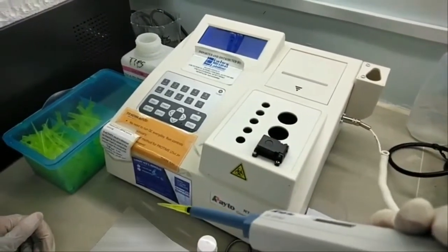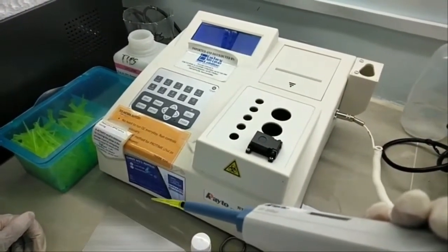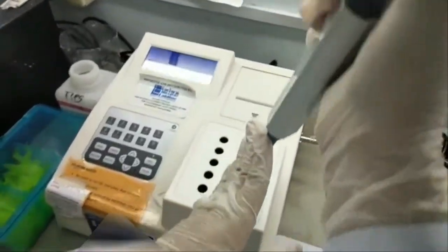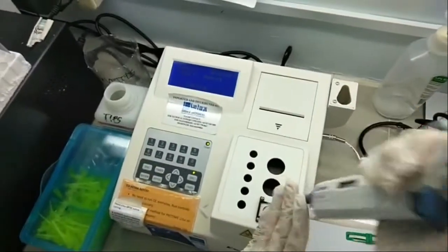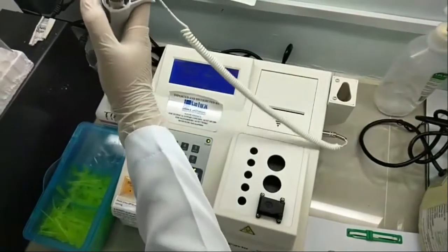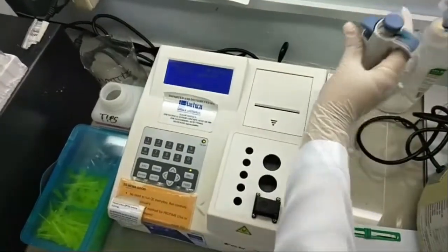Wait until the LCD displays the ADD REAGENT command. To ensure that all the reagent is dispensed properly, press down the pipette to the second stop.